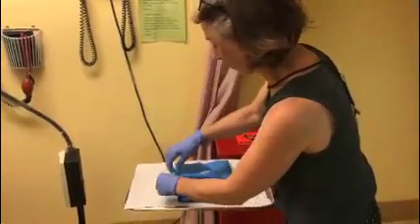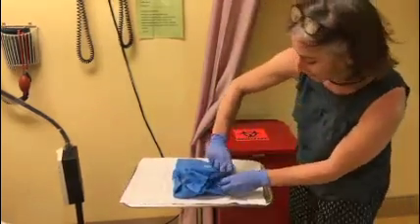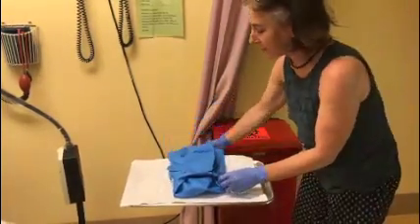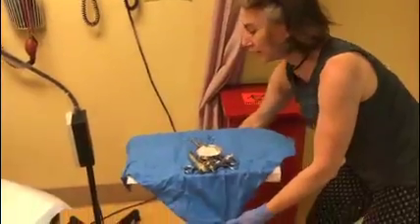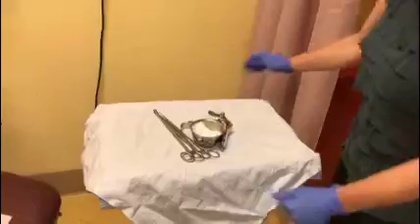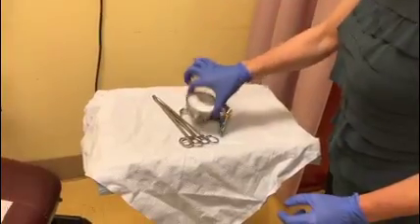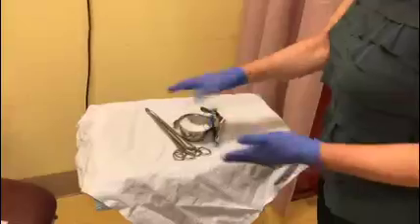I carefully open it up — it's better when it's just one or two pieces of tape so that I can carefully open the packaging. The inside of this packaging is sterile. I pull it down to the sides gently so that I can see the outline of my tray. I'm using the cup to delineate the sterile versus non-sterile sides of the tray.